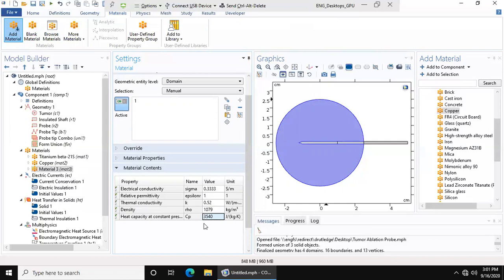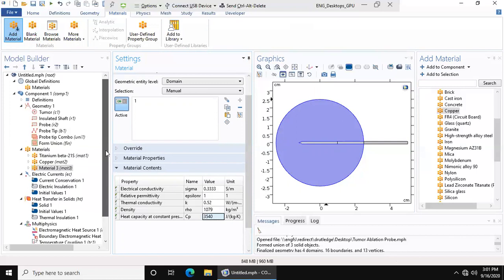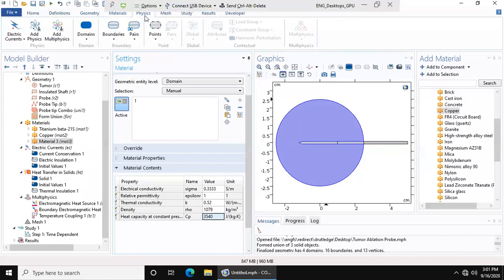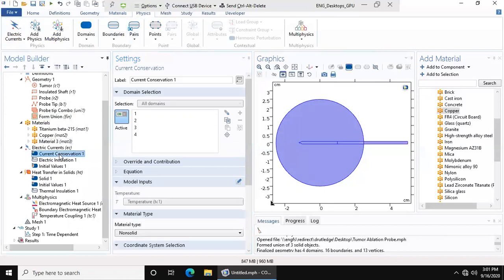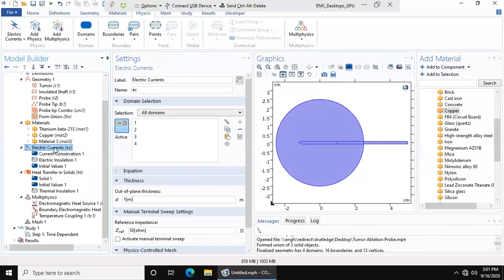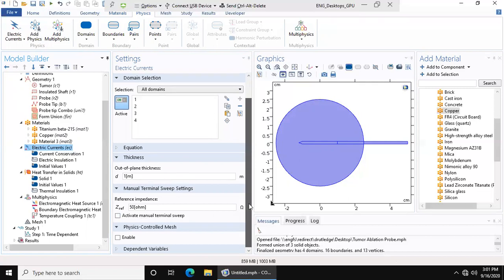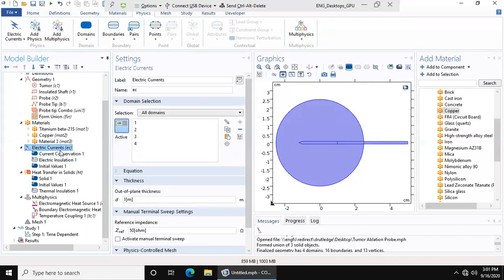Now that we have our materials added, we want to make sure we have the physics lined up correctly in our model, otherwise there's really no point to running the model. So let's go to physics. You have several different options, so many parameters, but we aren't going to mess with anything here in this particular tab.